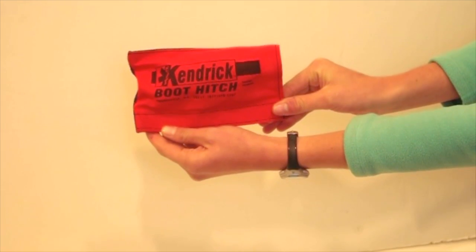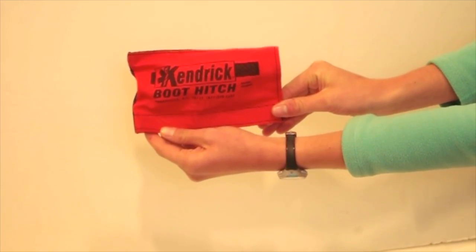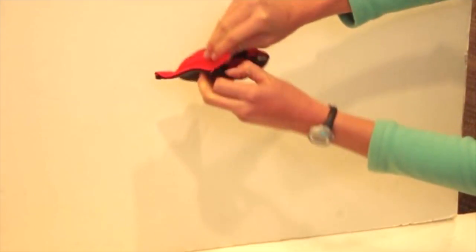So what you want for somebody wearing a boot is the boot hitch. When that comes out of its little envelope, it's kind of an unholy mess of straps.